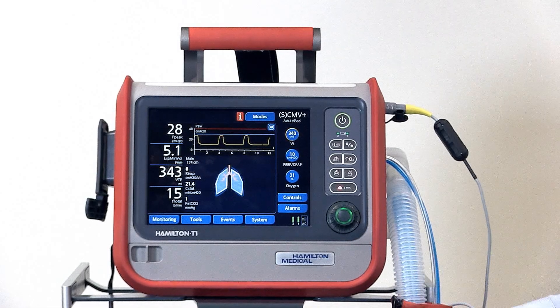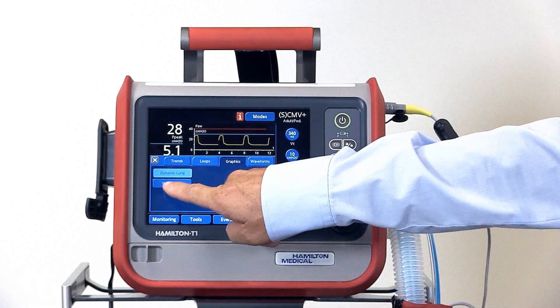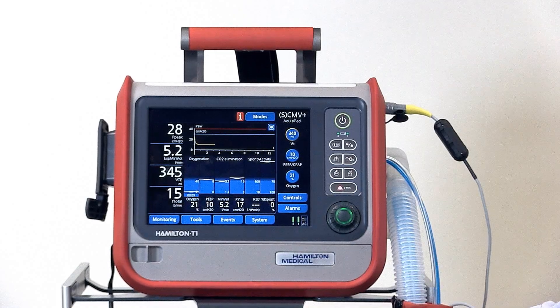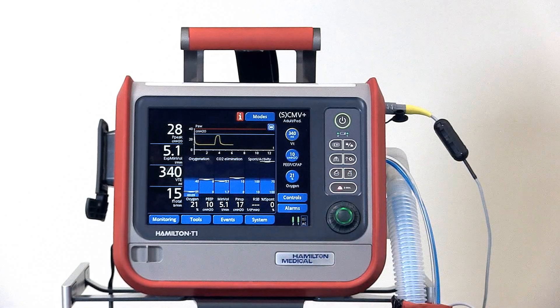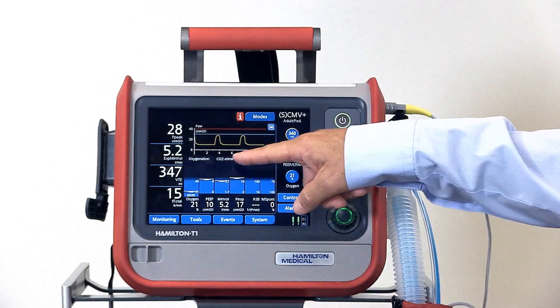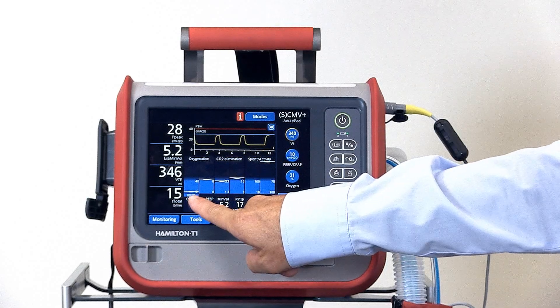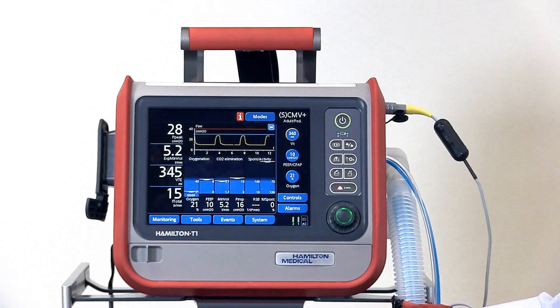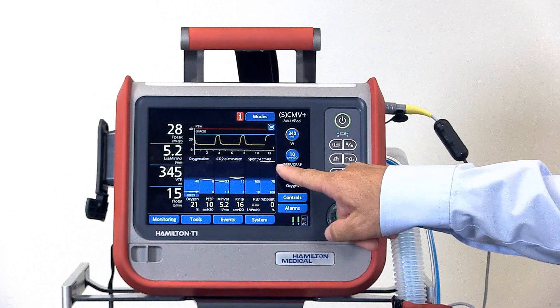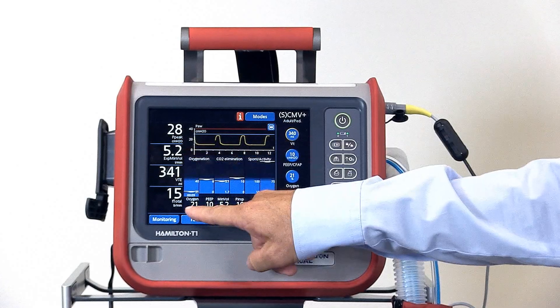This monitoring panel can be changed to display different graphics. Let's touch the panel in the center and display the vent status panel. The vent status panel displays six different monitoring parameters, each with defined upper and lower limits. As the indicators reach the weaning parameter limits, a small timer appears showing how long that parameter has been within weaning limits. When all timers appear, a large timer appears and the panel is framed in green.